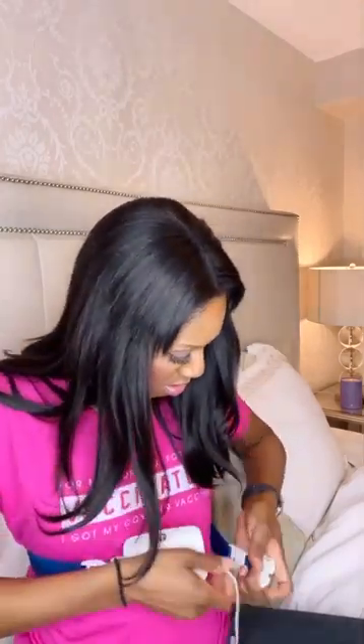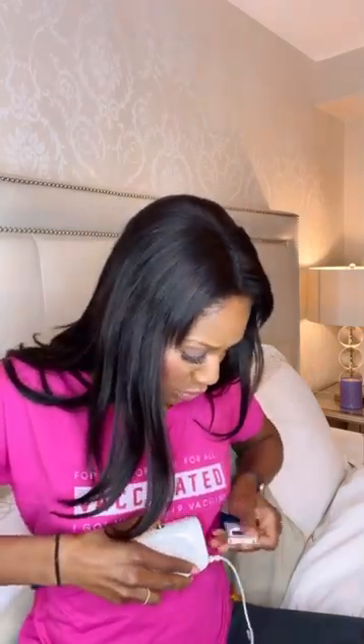We're going to bed like this because I'm doing a sleep study and this is what you've got to do. Here we go — this is the monitor. Let's see if we can get this in. It's supposed to be snug, not super tight, but snug. I think that's good. Let me pull my hair back because we're getting down to business. This is where we hook the nasal cannula onto the top of the monitor.